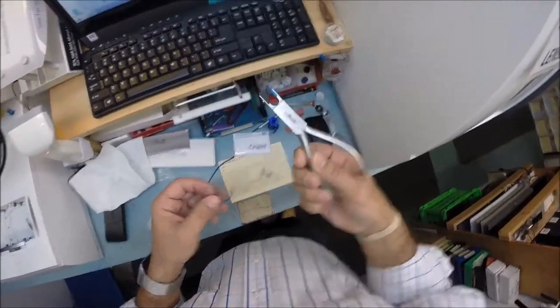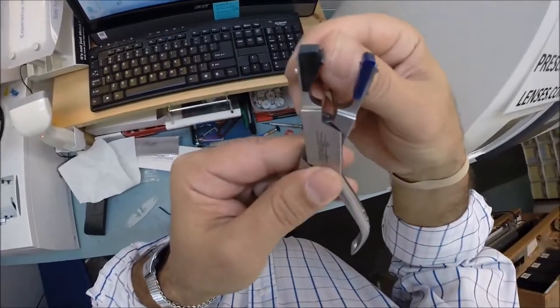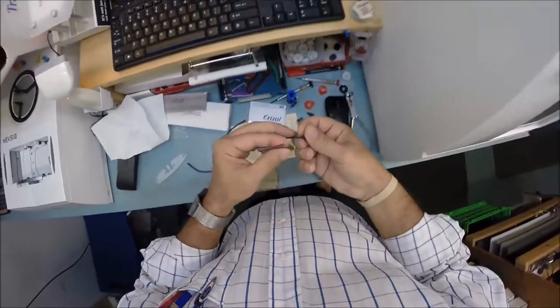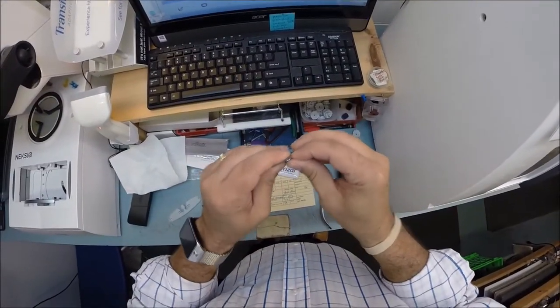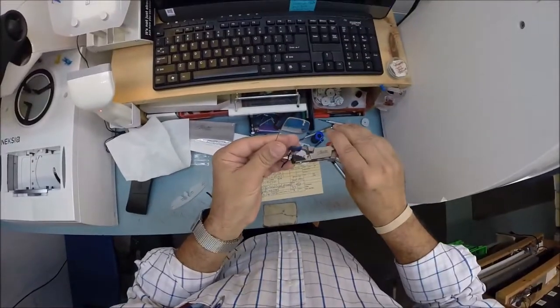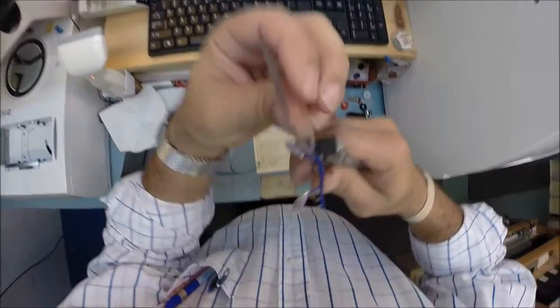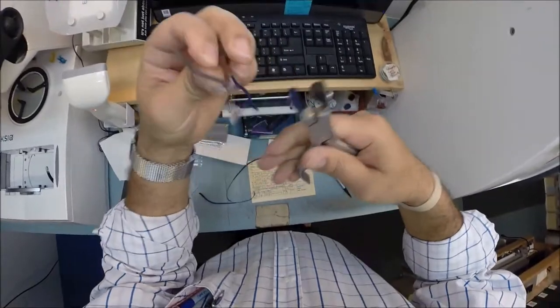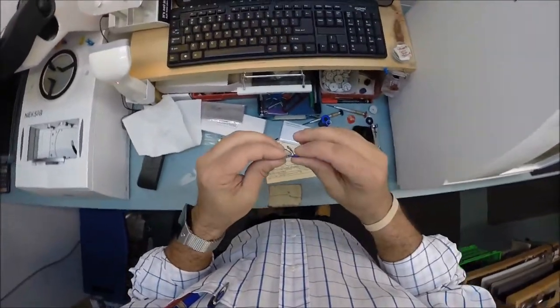The last tool I need from Silhouette is a pair of pliers that I'm going to use to press the bridge and temple onto the frame. It has a little pivoting joint in it that you will see move as I mount the lens. These little prongs go right into the holes — I press down a little bit to get it started so it holds. One side of the bridge does the bushing, the other side of the pliers squeezes down. And if it were to move due to the shape of the lens, the pivoting joint can move with it.